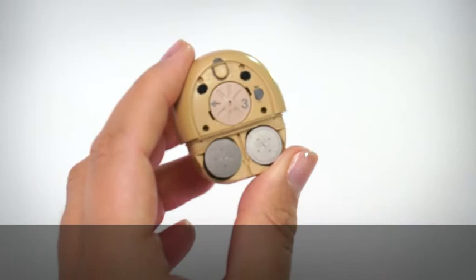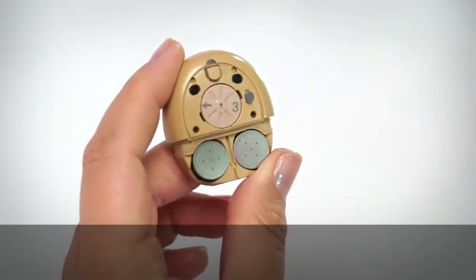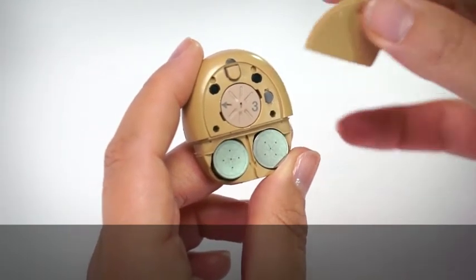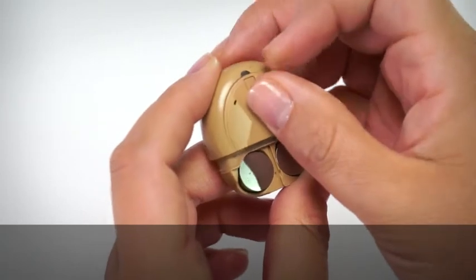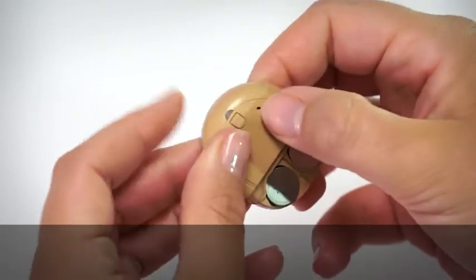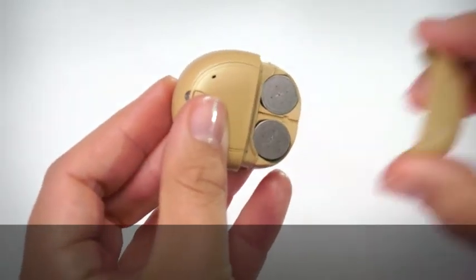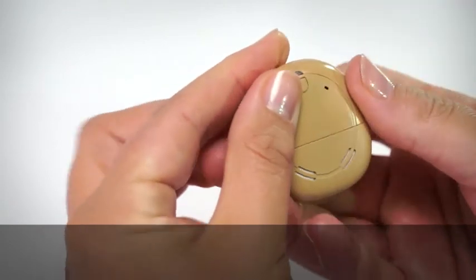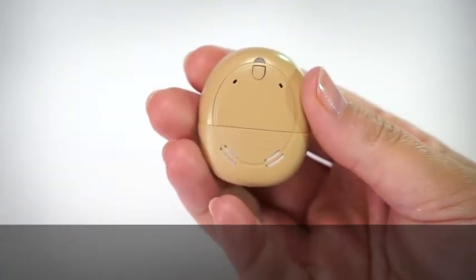Replace the front cover. Replace the battery cover and lock the cover if required.